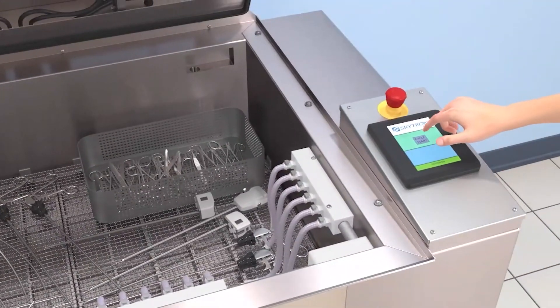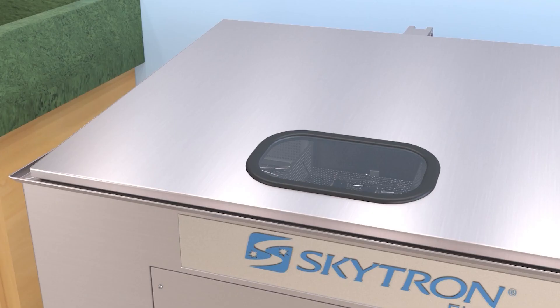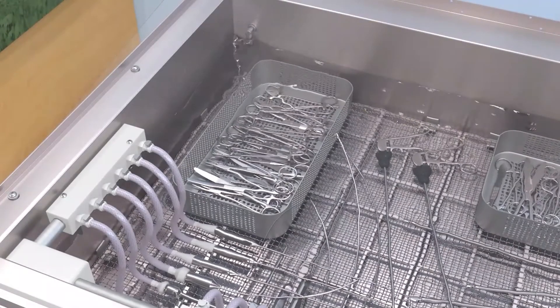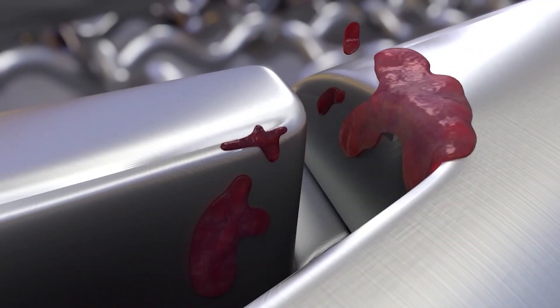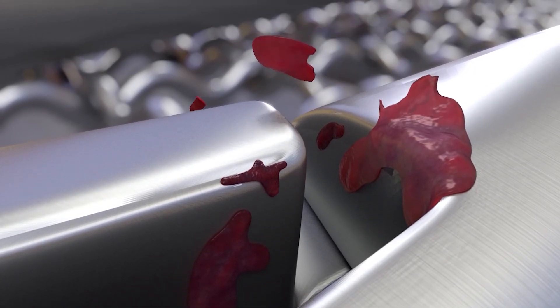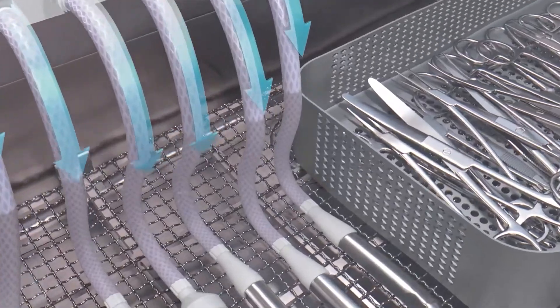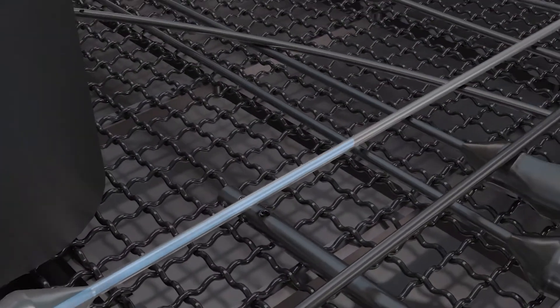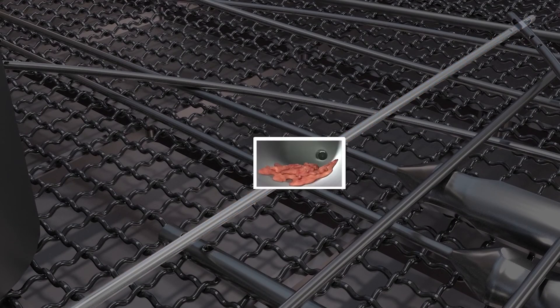With the push of a button, the fully automated wash sequence begins. The wash tank is filled with 120-degree water that is dosed with enzymatic solution, loosening blood and other unintended debris from the instruments. During the 21-minute soak, the ports direct a flow of solution along the interior surface of the cannulated instruments, allowing the instruments to sit with enzymatic solution inside.